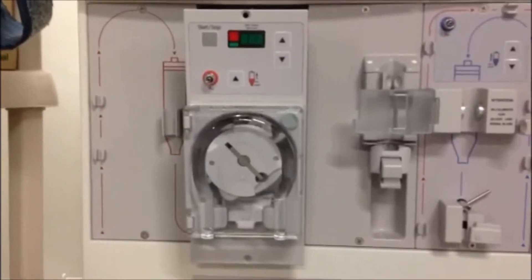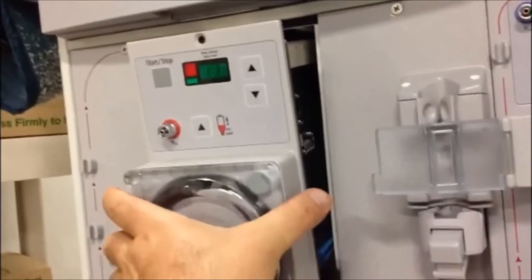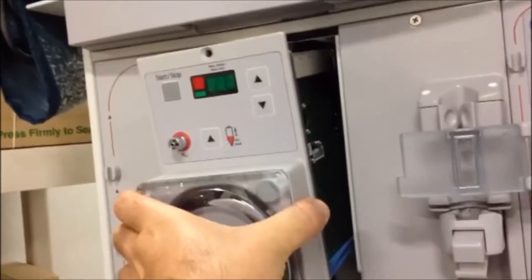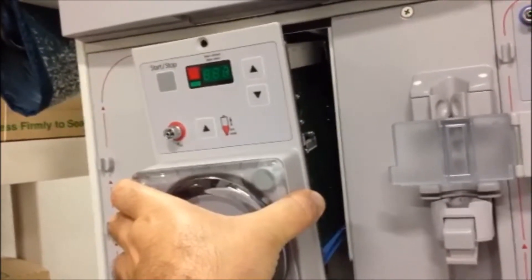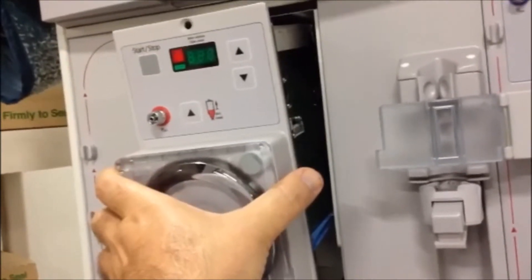Now the screws have been removed. You can see how it comes out and it's on the side. You can hold it and pull it out, and be cautious because in the back is where the electricity attaches to the pump.